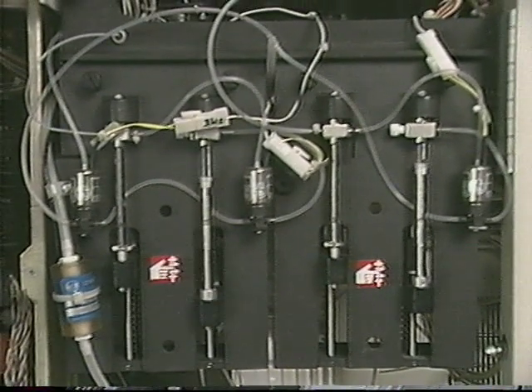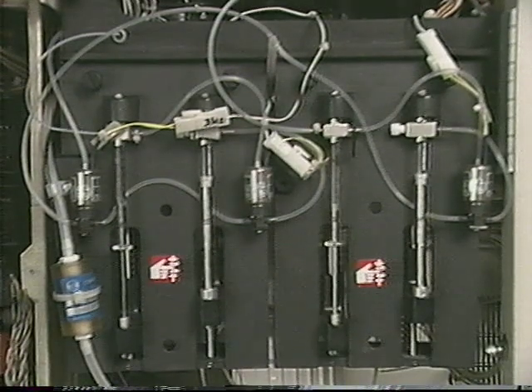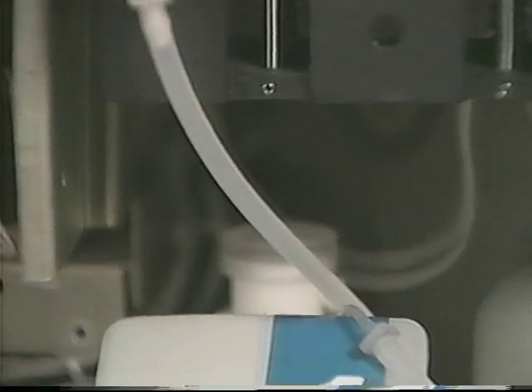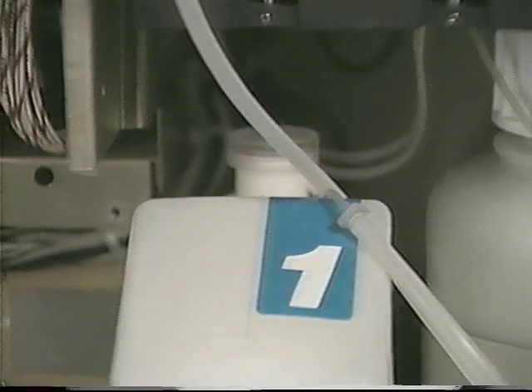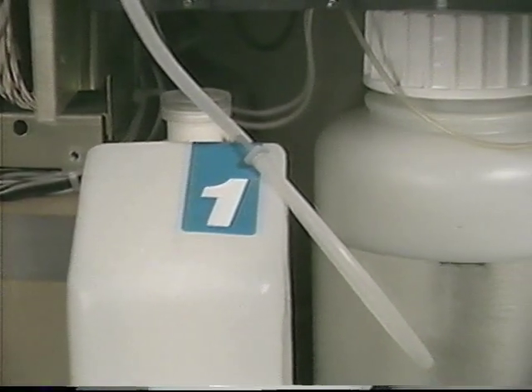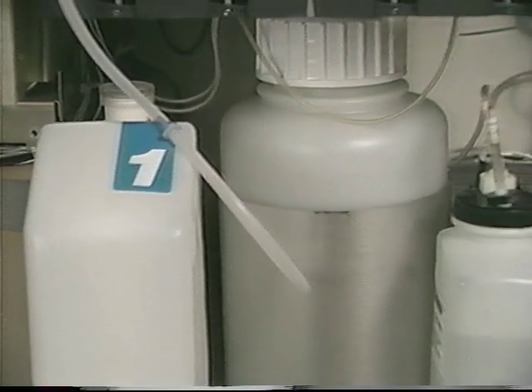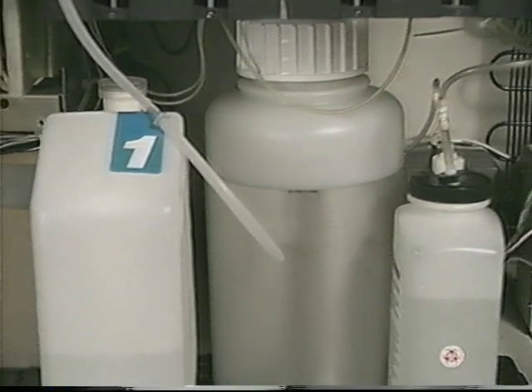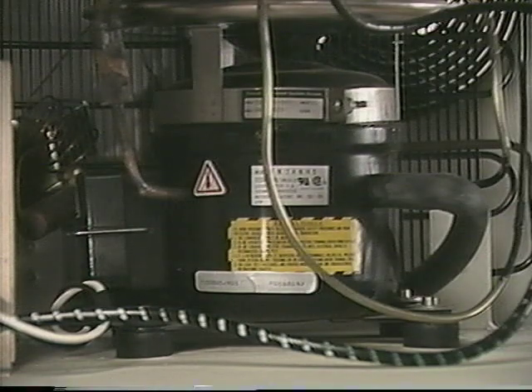Moving to the right of the control boards is the syringe panel, which has 4 Hamilton syringes used in sample and reagent metering and sample and reagent flush to ensure precise delivery of all system fluids. Just below the syringe panel is the purified water diluent, the only diluent used on the Dimension system. The waste containers for chemistry and ISE fluids, located beside the diluent bottle, are self-contained on the instrument, providing easy disposal and maximum insurance against biohazard contamination.